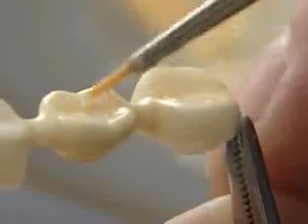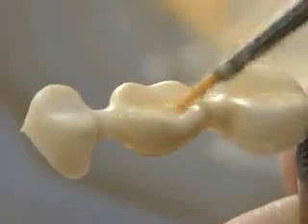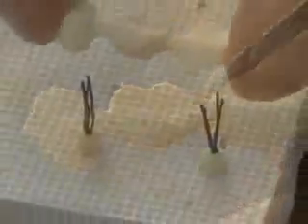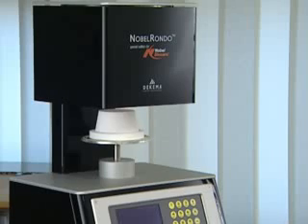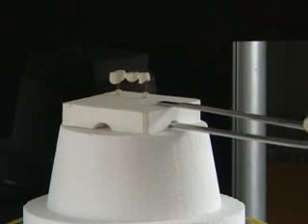The fossa areas are coloured an orange shade. Overall, the base liner should not be applied too thickly. These special firing trays are fully recommended since they compensate for the low heat conductivity of the zirconia substructure. The Nobel Rondo zirconia base liner is fired at 930 degrees Celsius.